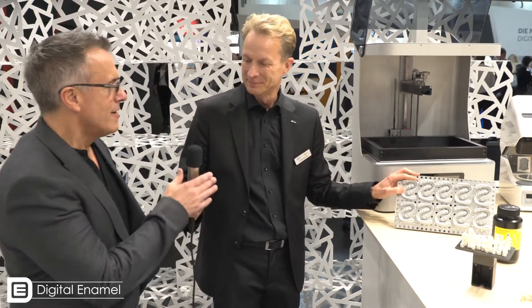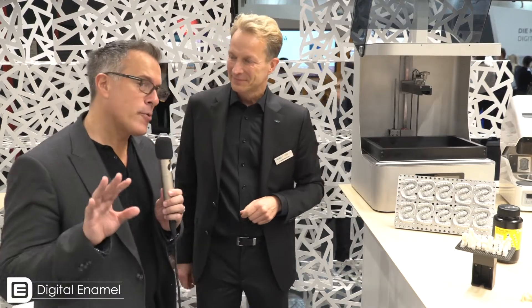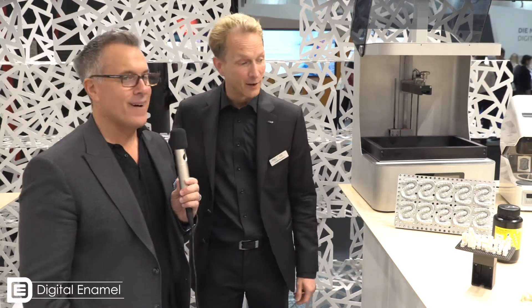This is really a smart and cool device — the precision is about 50 microns. For those who don't appreciate the difference: a lot of printers are DLP-based with a projector, but this uses an LCD screen, probably the largest LCD screen I have ever seen. You know GC — they're going to have temporary material in all sorts of different shades. Very cool and very accurate.